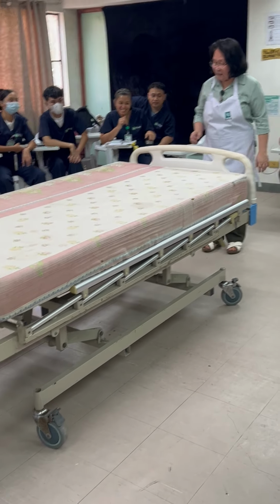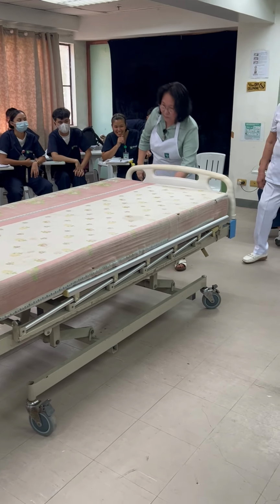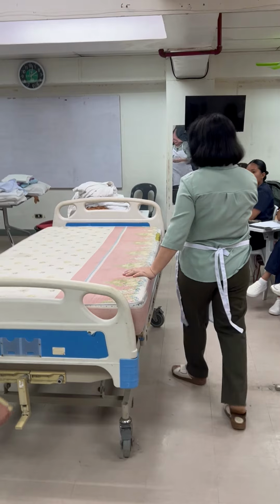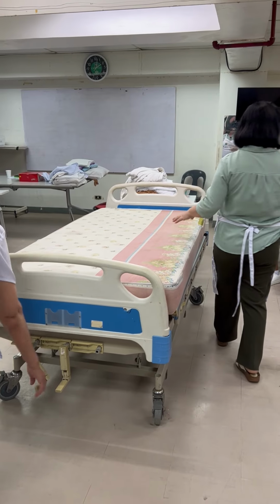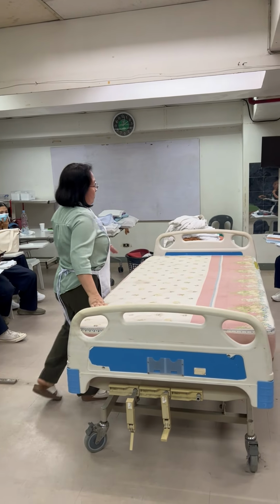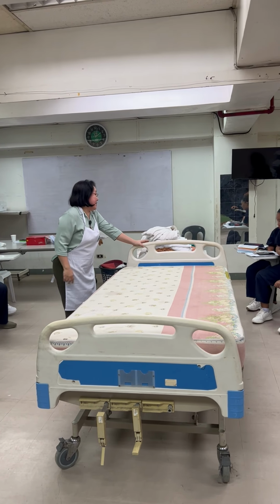Okay? Provided, it should be there, but currently it's not available. But it should be there. That's why we use the term provided. Okay. So, provided, kini siya na-address sa foot part. Okay? The importance is, depende sa procedure that we need to elevate. Ang head part, ang foot part, or the entire bed. No? In this case, when we are doing bed making, we need to elevate para sa comfortable working position for what? Whose safety? Sa provider para body mechanics, no?